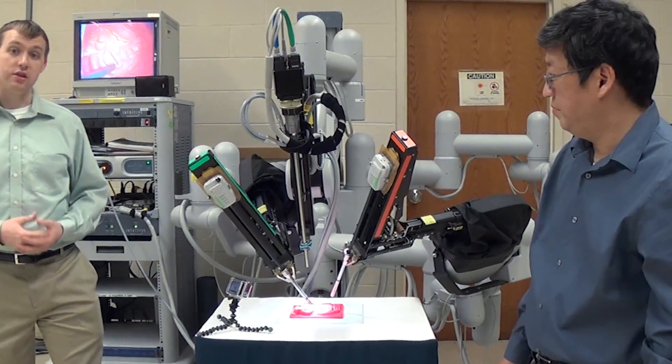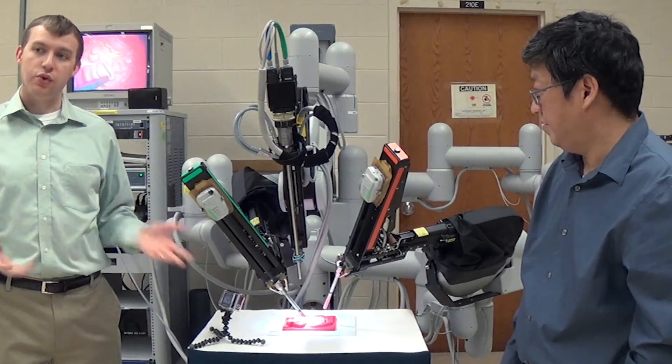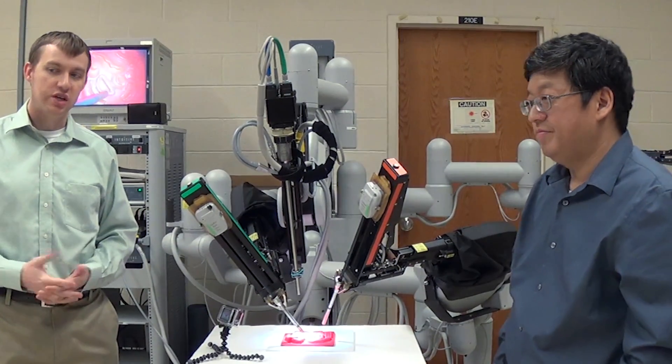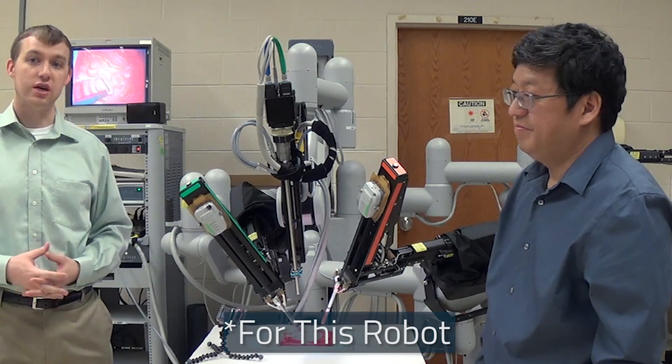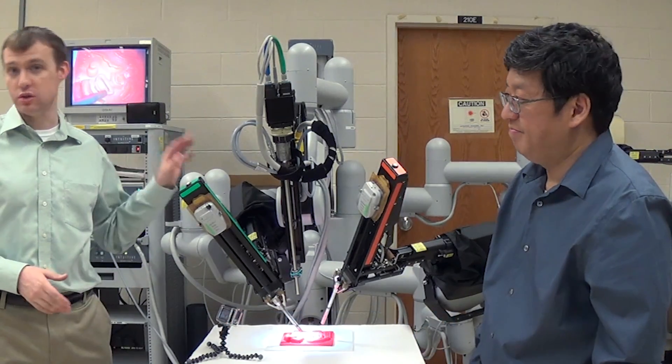So at this point then, the surgery would start. Unfortunately, we haven't completed development of any autonomous suturing, so instead we will demonstrate the types of controls that are used by surgeons when they practice using a machine like this.